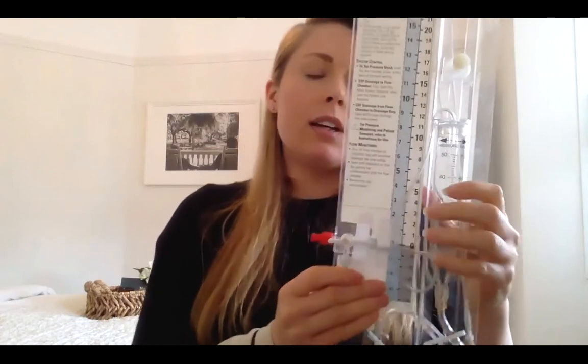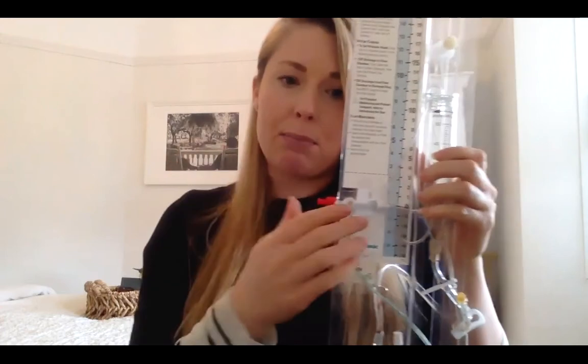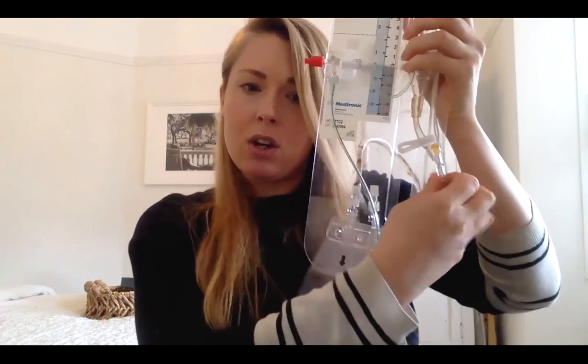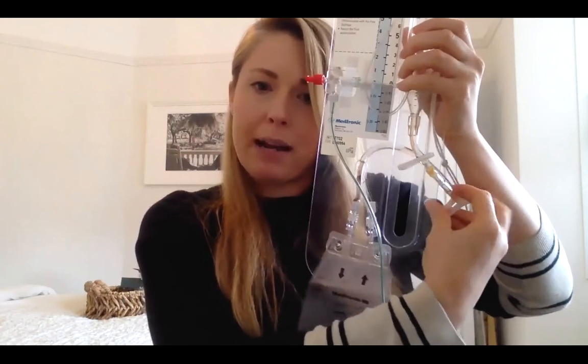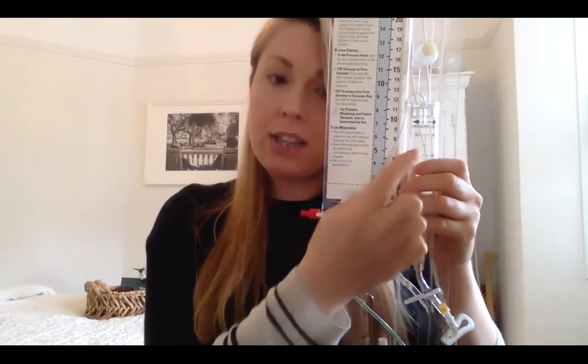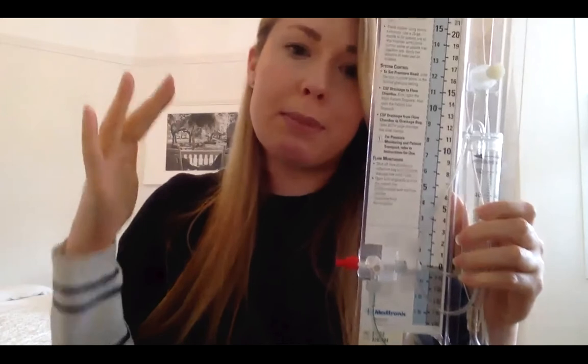The other times that will happen is when the nurses are draining from the chamber into this bag. They're taught obviously because they're going to unclamp to make sure that the system's clamped off. So what they will do is they will turn it off to the patient, undo these clamps so that it can drain into the bag, and put the clamps back on. And if they forget to turn this tap and reopen it to the patient, again, CSF flow will be impeded into this chamber.